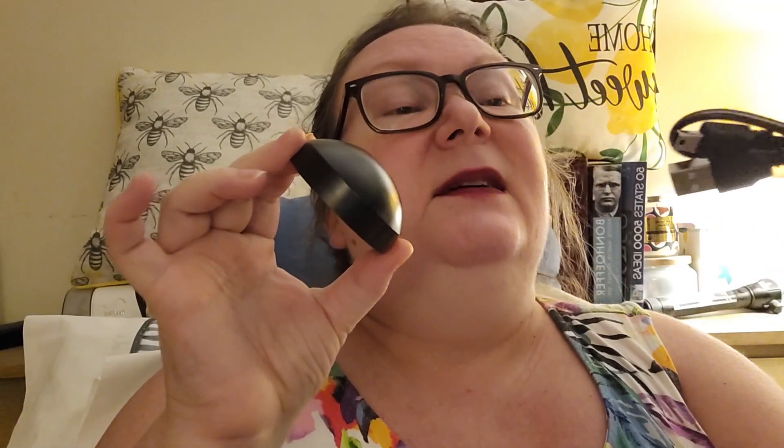I'm not going to try it right this minute — this is just me showing y'all what it looks like. It came in this little package. I'm going to take the top off. It charges — I forgot — I was wondering if it needed batteries, but it is a chargeable sound amplifier. This is like the USB, and this is where you hold it in there. I'll have to charge it before I can try it anyway.